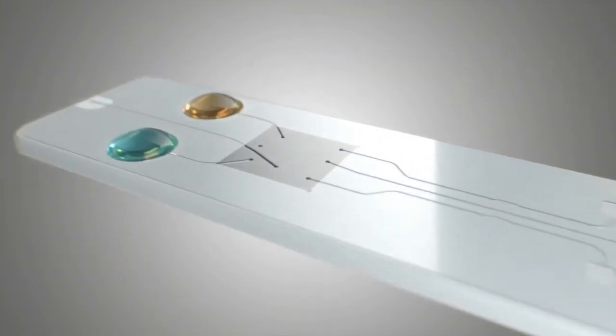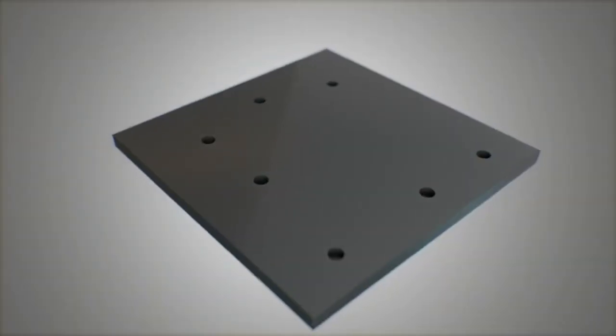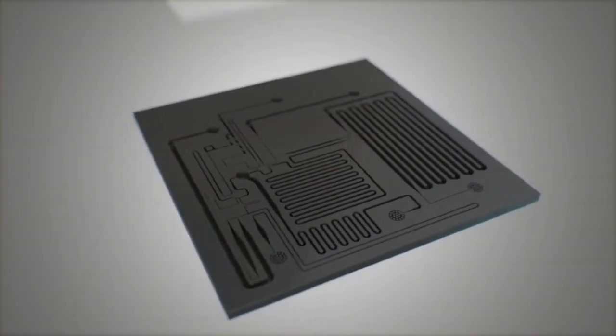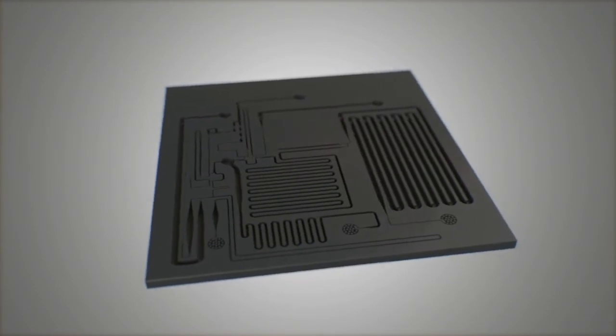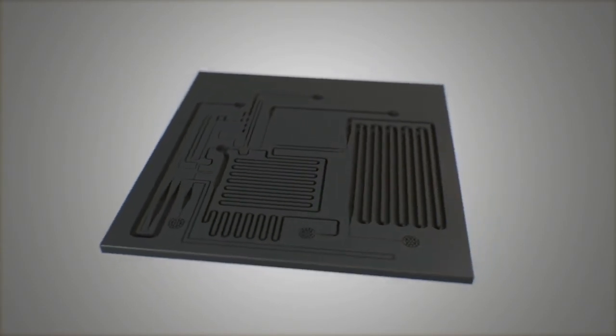At the core of the test card is a microfabricated silicon chip called the nanofluidic processor that processes liquid clinical samples using capillary forces alone.